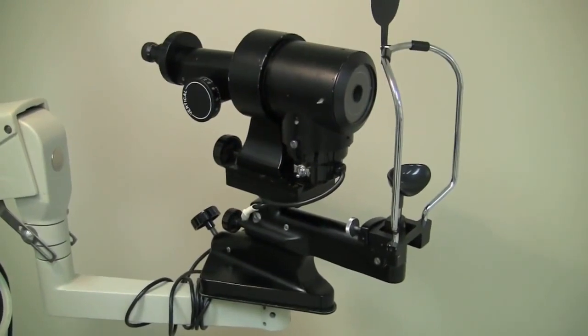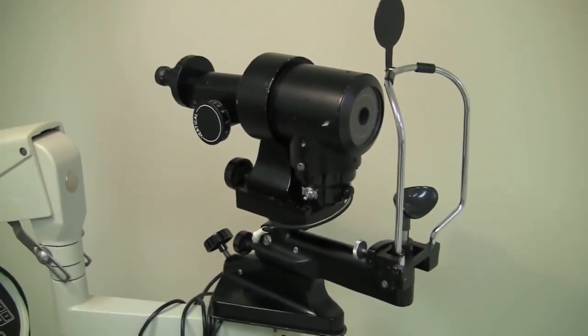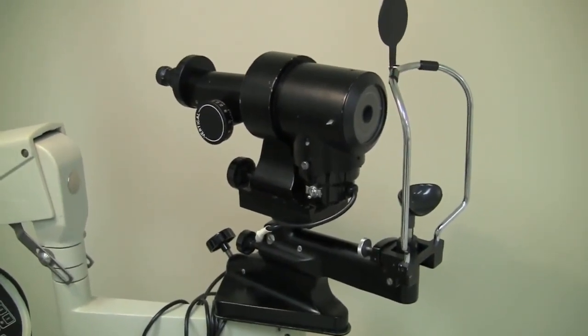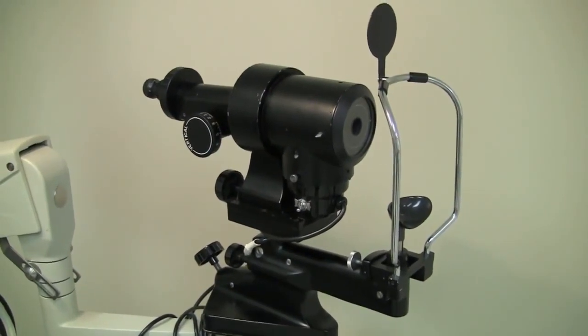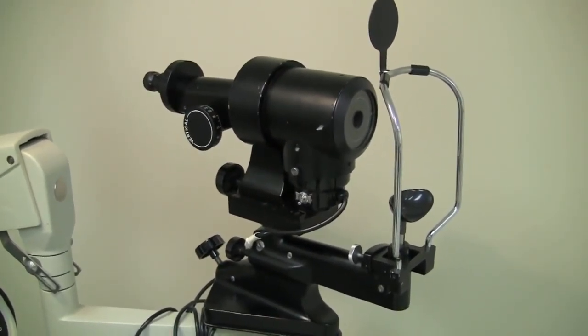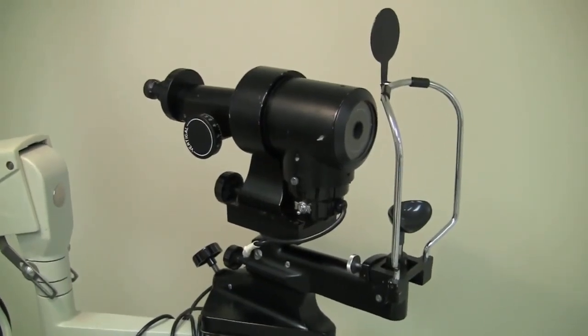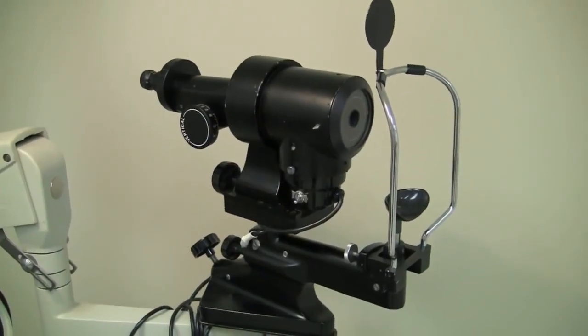As you've been learning about in theory and methods, this is a keratometer, and it's used to measure the radius of curvature of the cornea, which we use to indirectly figure out the power of the cornea. We use this instrument quite a bit for measuring the corneal integrity. The main use for it most of the time is to actually fit contact lenses, although we don't use it in all cases for that, it's still probably the most prevalent use of it.